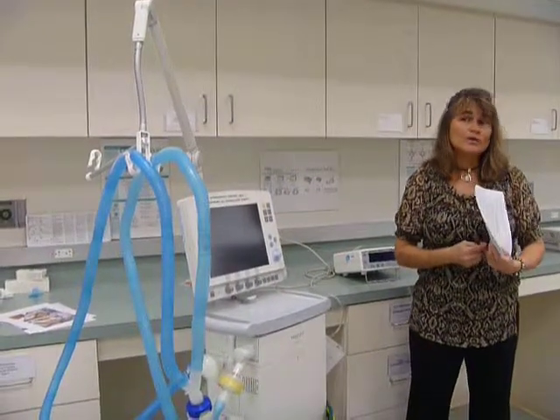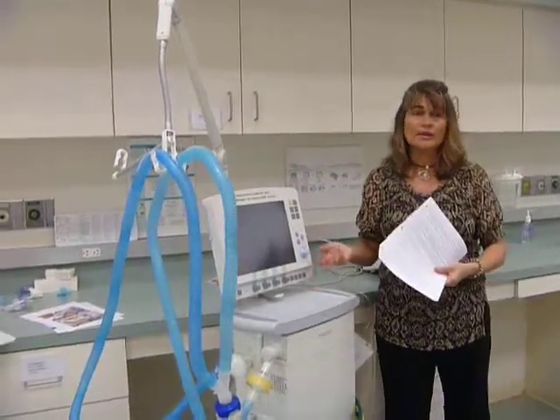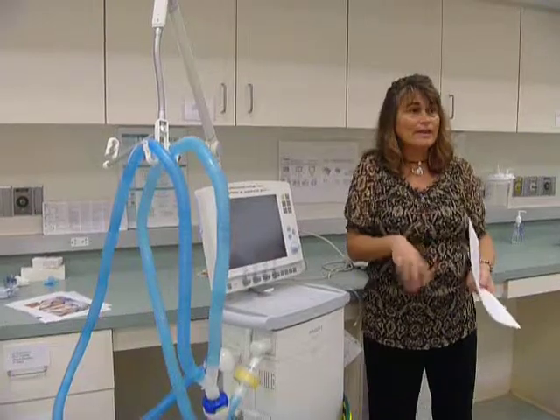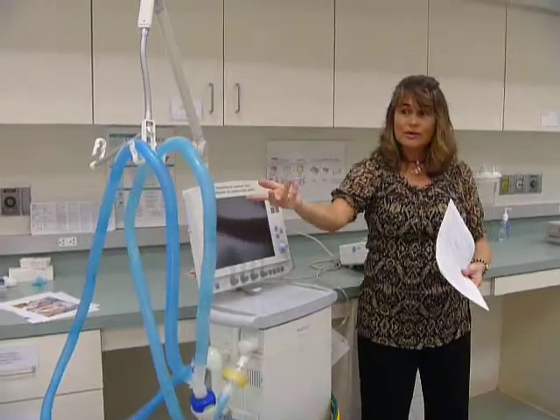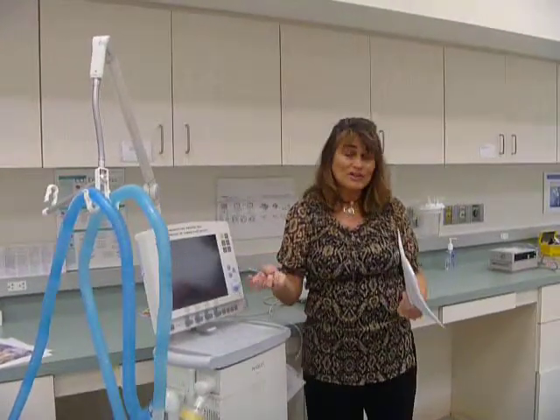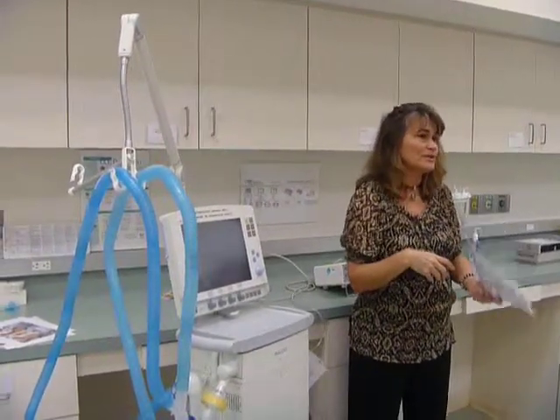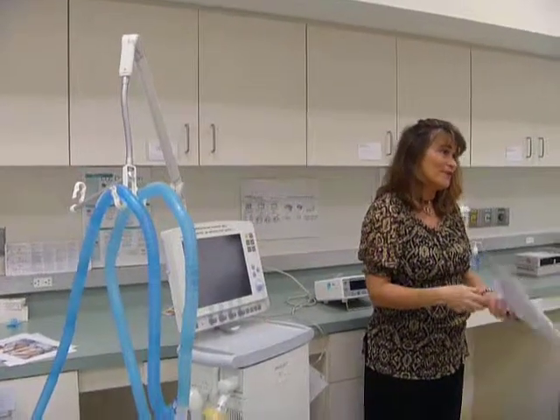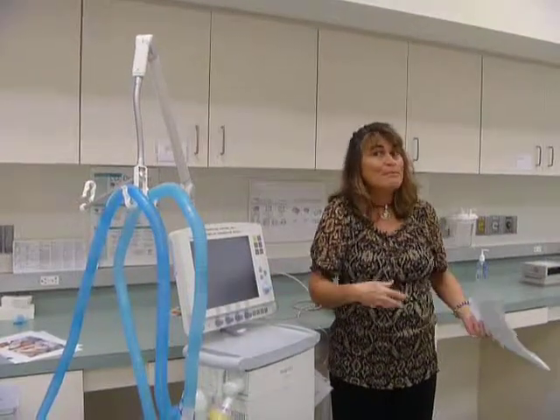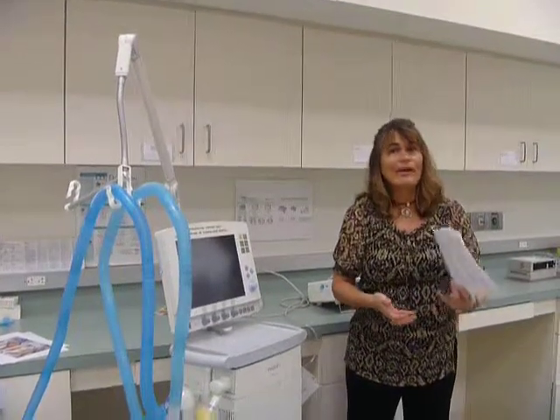And it used to be where the circuit was changed every 24 hours. First thing in the morning, we'd start our shift, we had to put a clean circuit on the ventilator. It was believed at the time that the reason patients are put on a ventilator and they have pneumonia within a day or two is that the circuit is contaminating their lungs. Well, over the years, they found out that no, the contamination is not coming from the circuit, it's coming from the oropharyngeal secretions that drip down past the endotracheal tube. And that's what causes them to get pneumonia after they're on the ventilator. So then they found that the less the circuit gets changed and manipulated, the better off we are as far as pneumonia developing with the patients. So now that's why they say PRN or every 30 days.